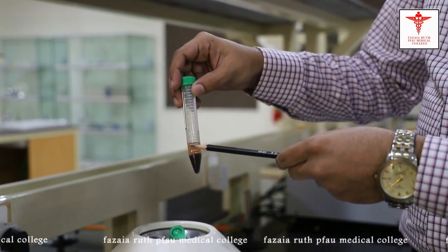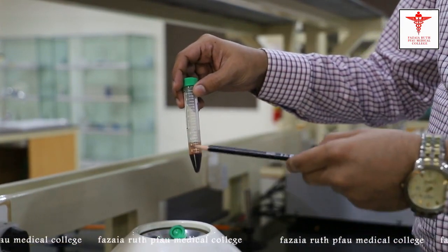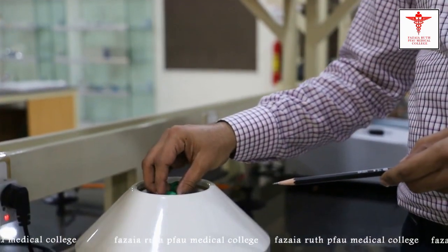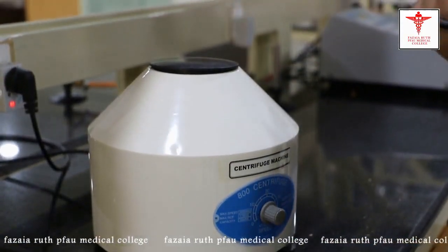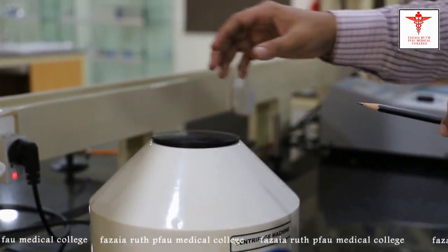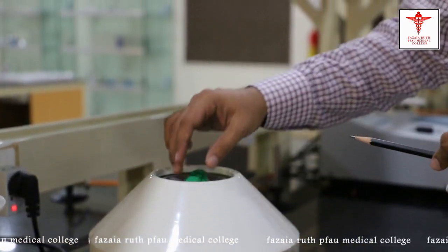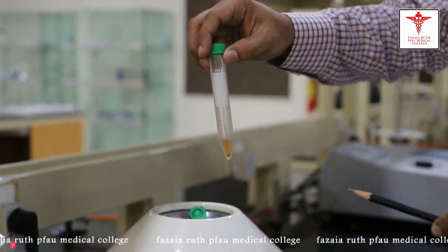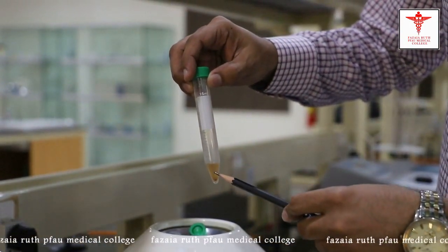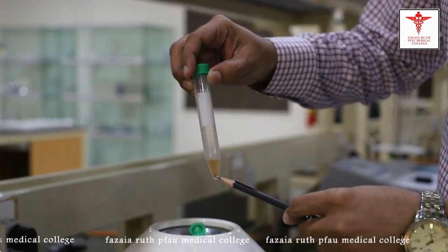We'll take out this plasma, leave it for a few minutes, and then centrifuge it again in order to get a clear serum. We had taken out the plasma and centrifuged it further for a few minutes. Here you can see the clearer serum, and some of the proteins have settled down at the bottom.